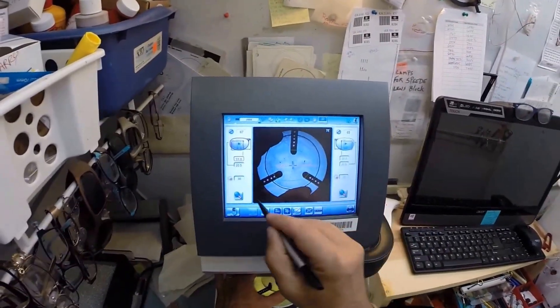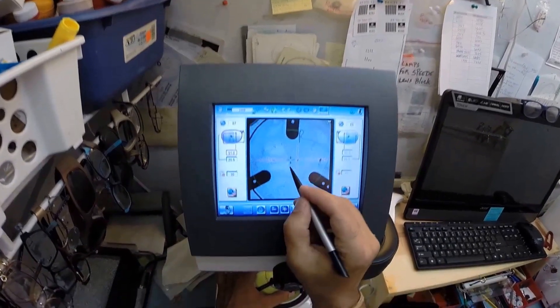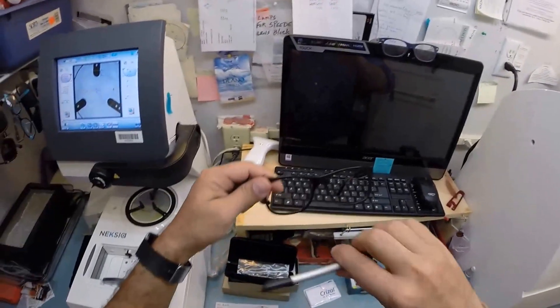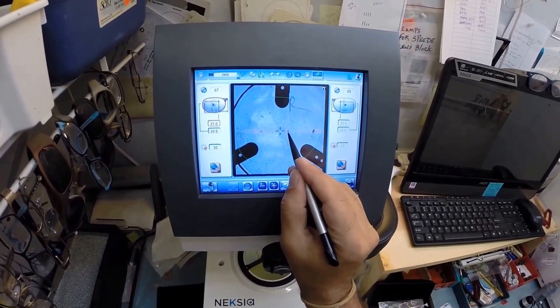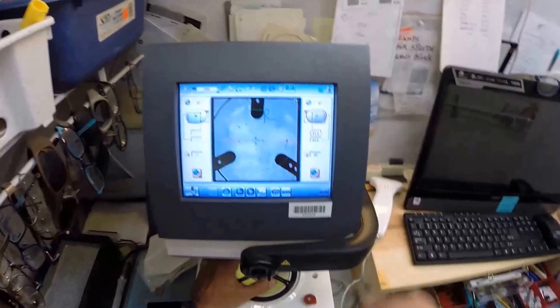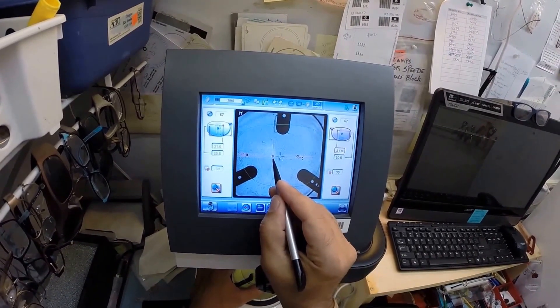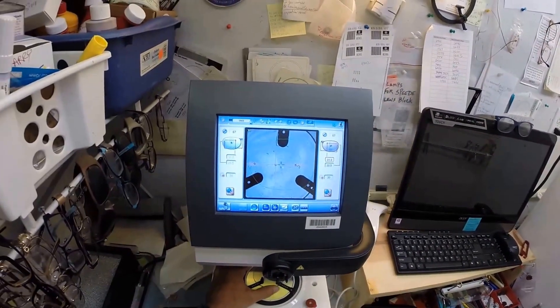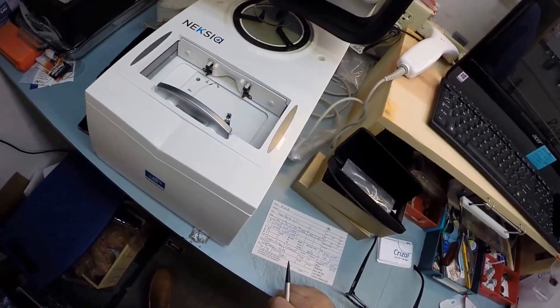You can see the outline of your lens - that is the shape of the lens we'll be cutting. I've got your pupillary distance set. I'm going to put that center dot right there. The blue cross is the geometric center of your frame. If I were to measure vertically and horizontally, we would come up with the geometric center. Your eye is just inset from there inside that orange cross, so I'm going to put your optical center there. Those other two dots tell me it's lined up perfectly. I'm going to hit that button, and now the block is going to be applied to your right lens. We're going to do the same thing now for the left lens. Your pupillary distance is mirrored from the right - we're staying at 31. Line up the optical center, which is going to sit dead center in front of your pupil. Let the magnet do its job, and now the block is going to be applied to your left lens.